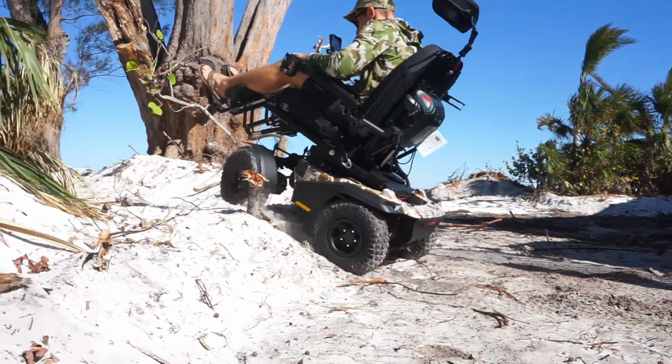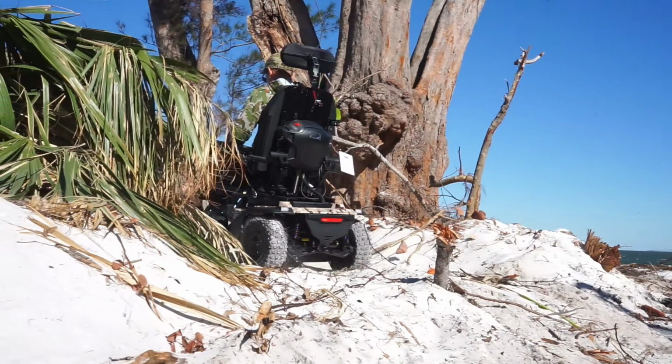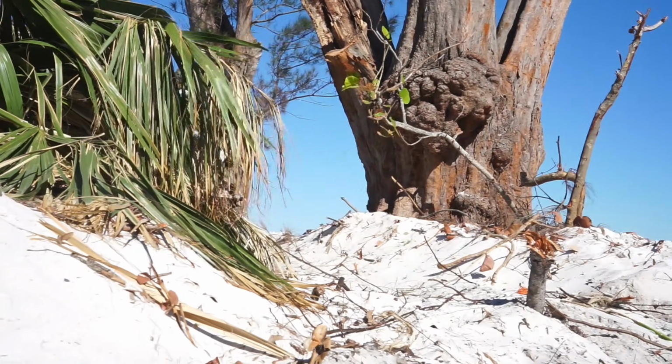Now, the unit does come with two different speed packages. You have a high torque motor, which is a 5-mile-an-hour package, or you have a high speed motor, which is a 6-mile-an-hour package. Since these are custom built, you can choose which motor package you want to go with. I assume most people would want the 5-mile-an-hour package since you're going to get the most torque out of this unit, but a 6-mile-an-hour package is also available.